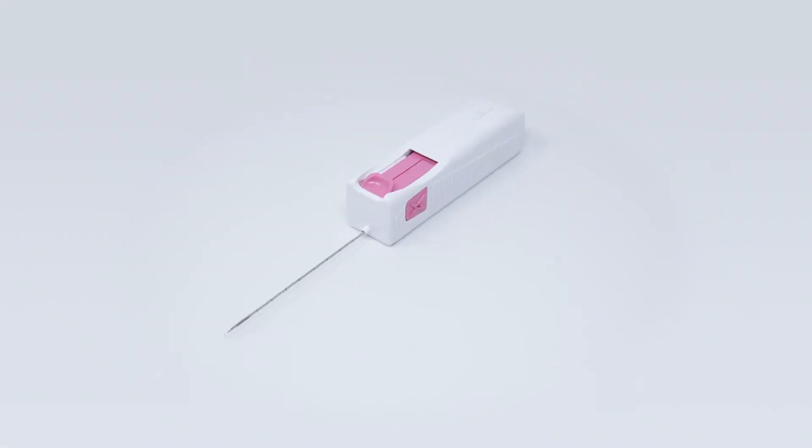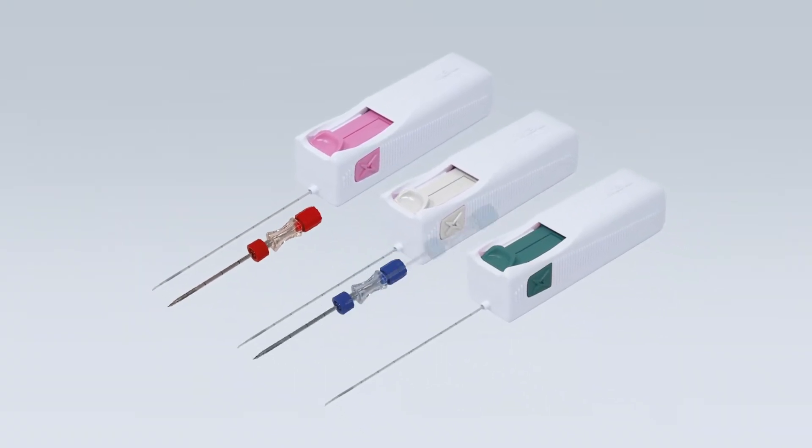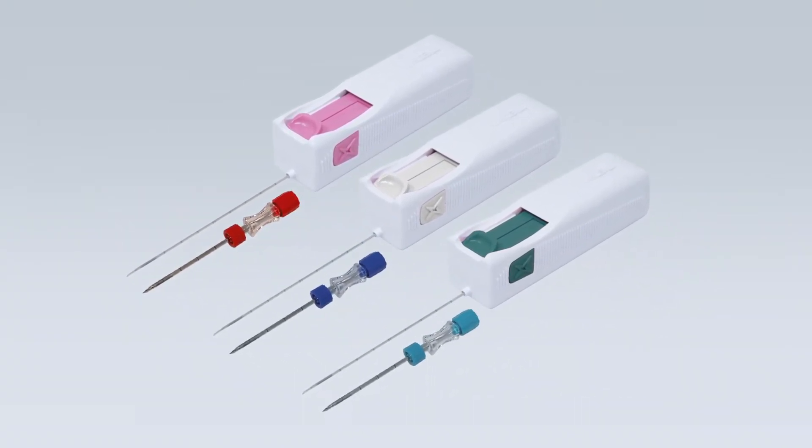For multiple biopsy procedures, MedOne is also available in combination with a dedicated coaxial needle to facilitate penetration and targeting during procedure.